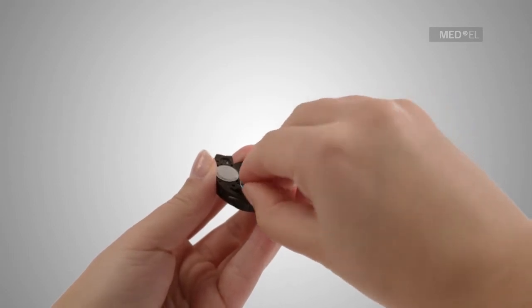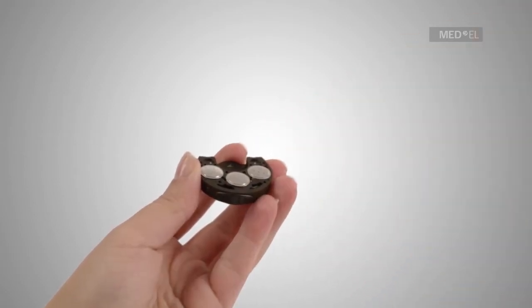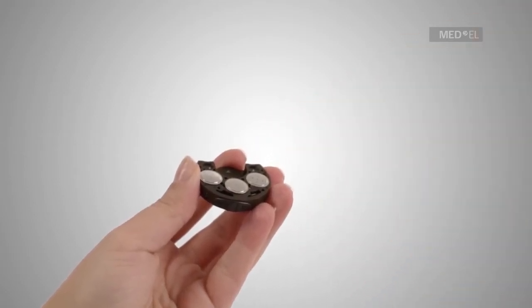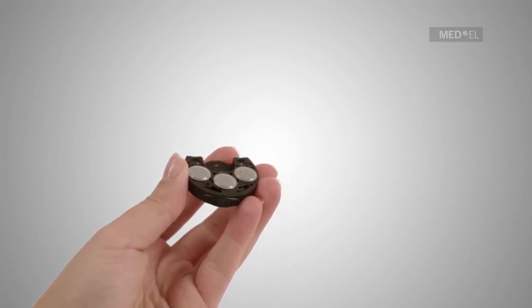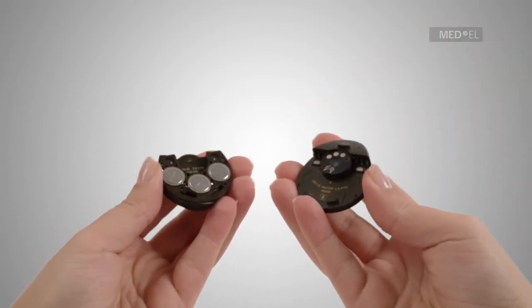When correctly inserted, the plus sign will still be visible after insertion. To reattach the battery pack once the batteries have been changed, use the gently landing airplane method.